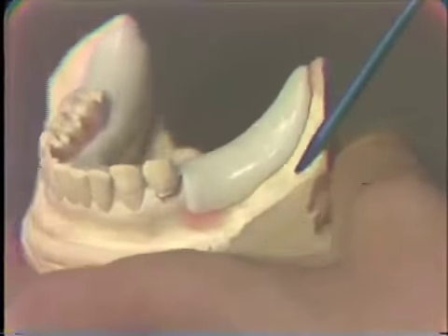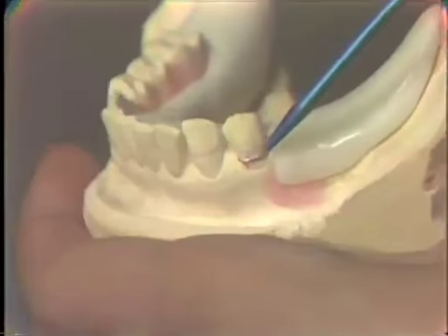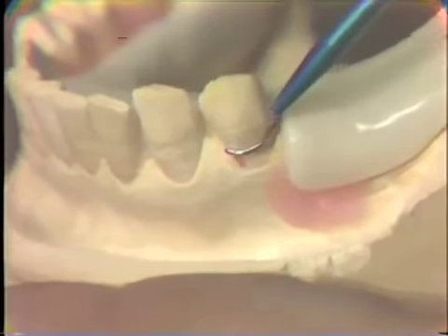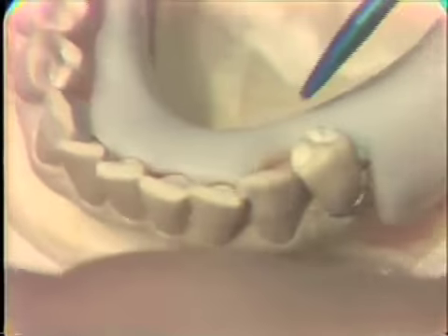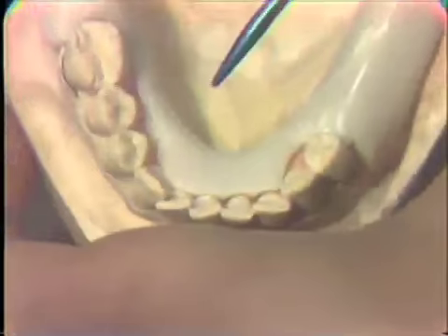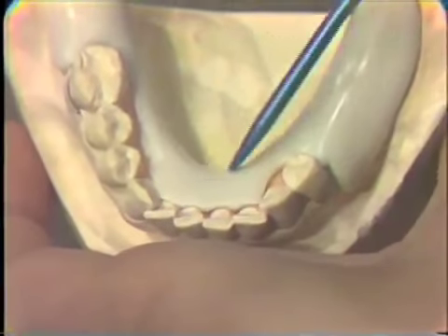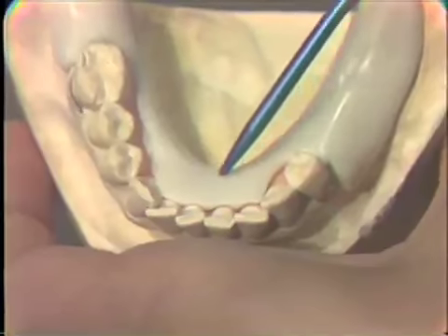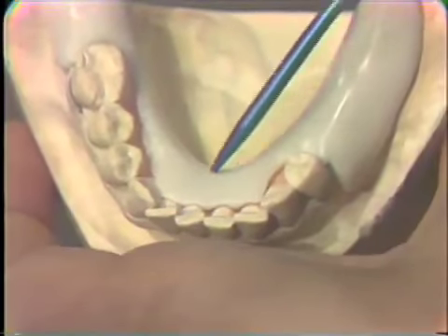So in fabricating the appliance, we would cut that short of the alginate, or the peripheral turn here that we had from the alginate. The clasp is in contact with the retentive area of the tooth in the infrabulge area. The clasp is also incorporated into the acrylic. The lingual bar area, again, from the standpoint of rigidity, should be very rigid. We can either leave the acrylic thick, if necessary, add the reinforcement.